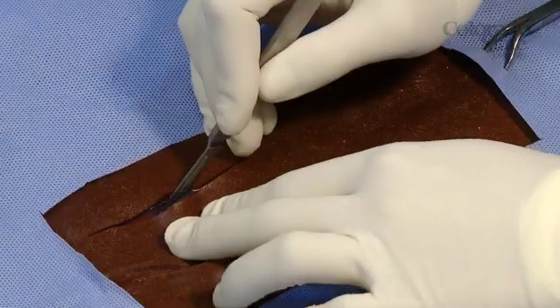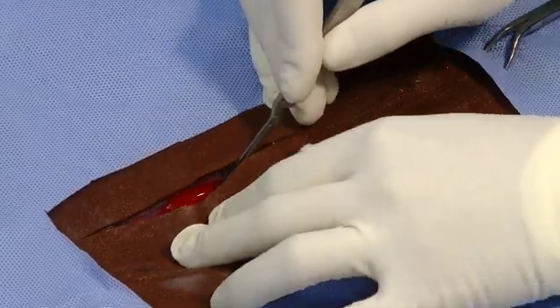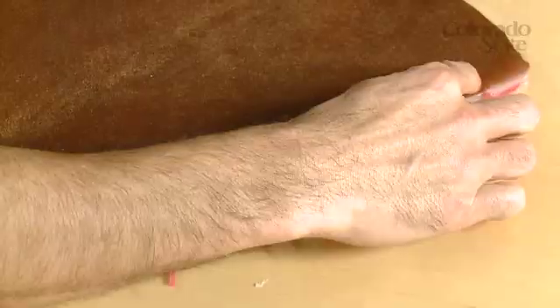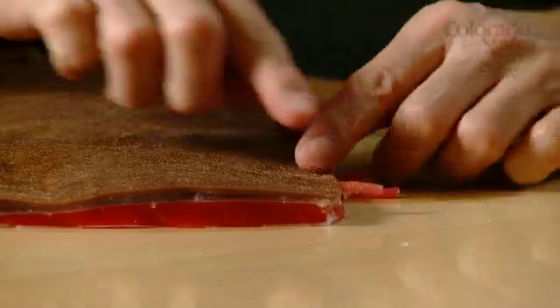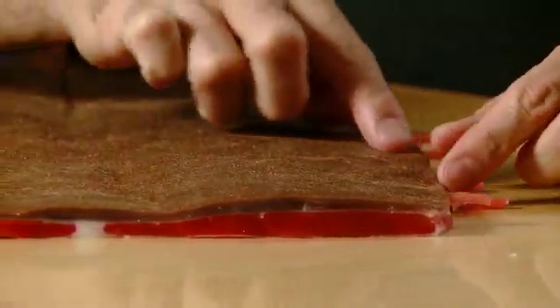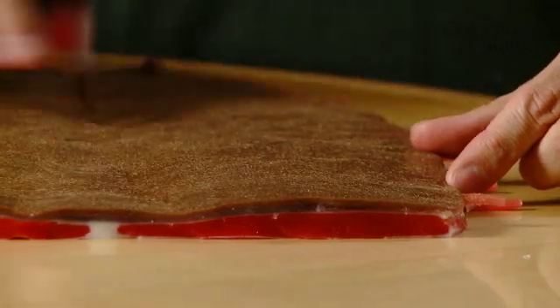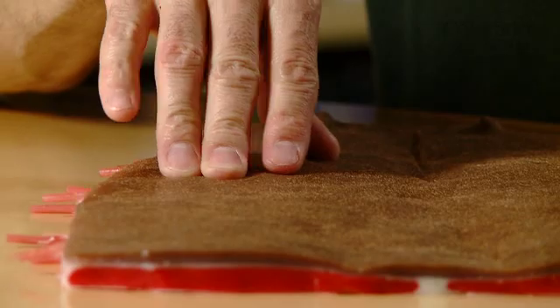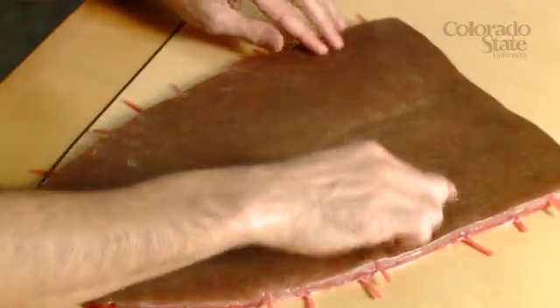You're also going to find the vessels that you're going to have to clamp and ligate — in other words, creating hemostasis. As you can see, there are these vessels sticking out here, these little silicone red ones, and they go across the whole model, and the ones in the muscle create loops all the way until they reach the midline.